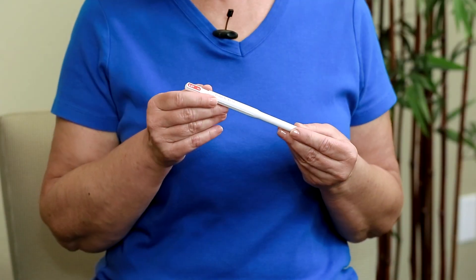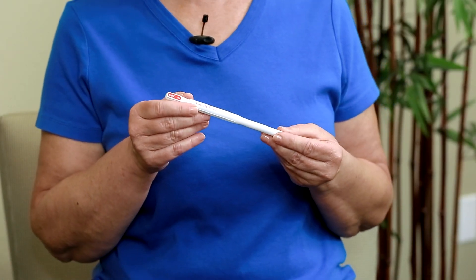The 5.07 sensory evaluator is an easy and safe way to test for loss of protective sensation. The sensory evaluator used for testing the diabetic foot is the 5.07 or 10 gram monofilament.